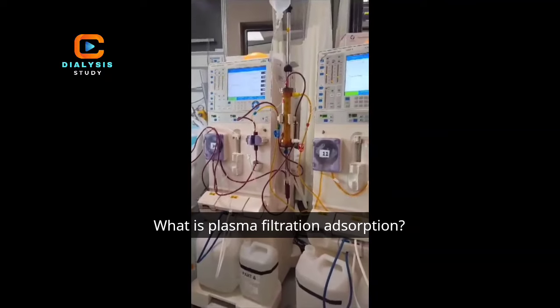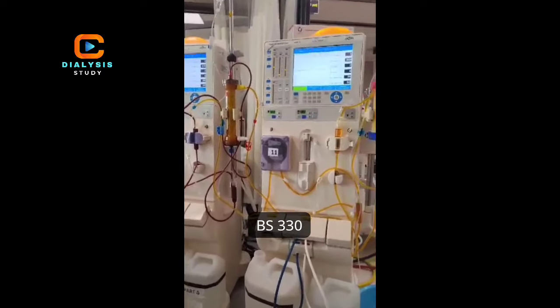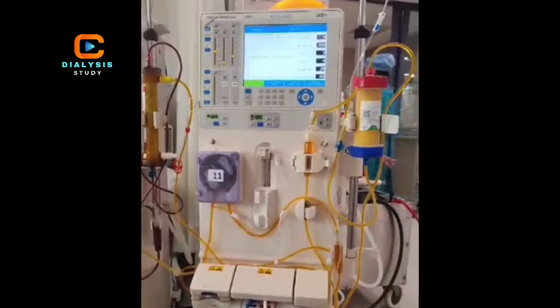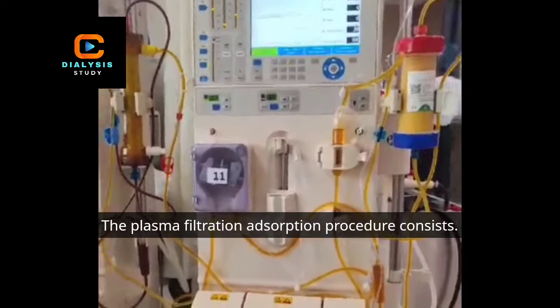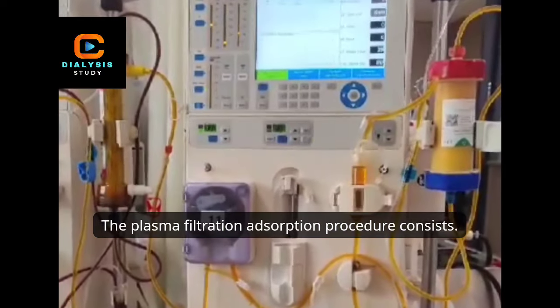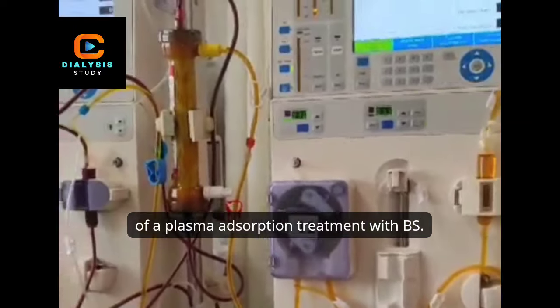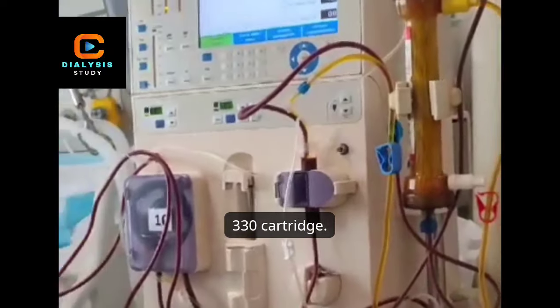What is plasma filtration adsorption? The plasma filtration adsorption procedure consists of a plasma adsorption treatment with the BS-330 cartridge.